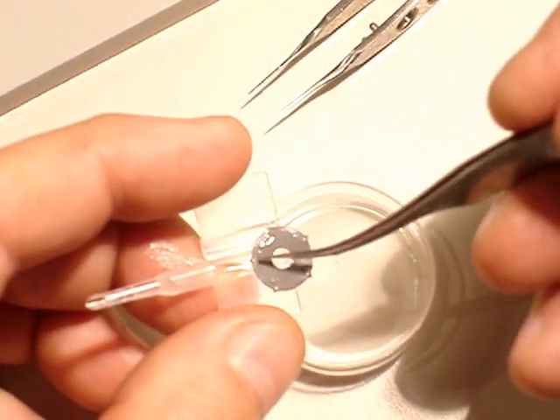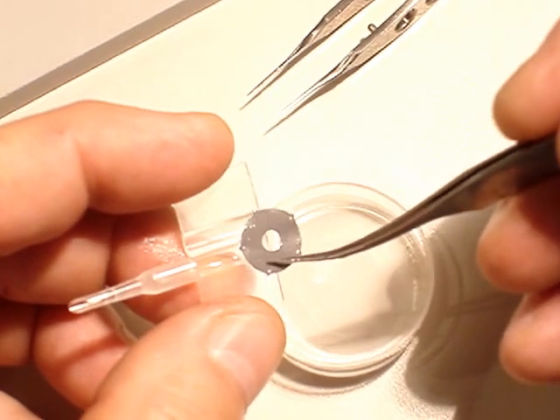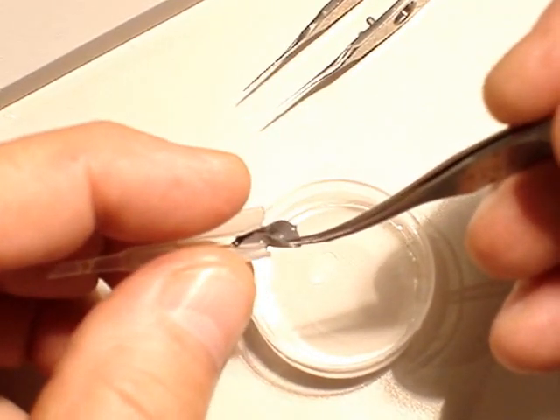Put the lens not into it, just put it on the border. Make sure you can fold it at the halfway point like that.